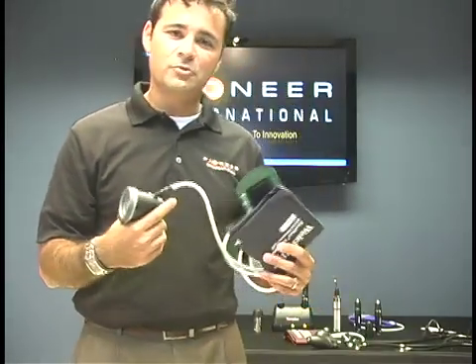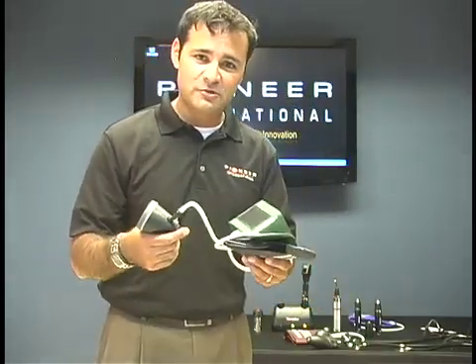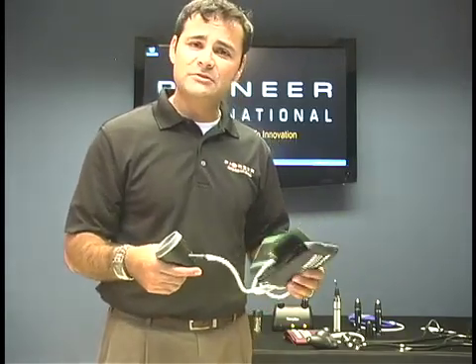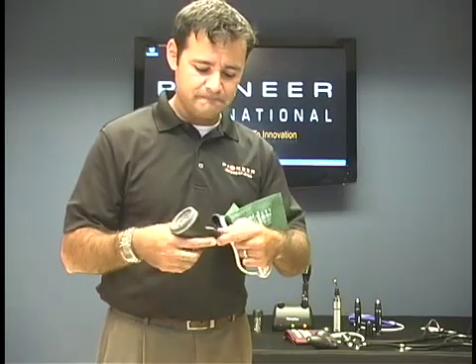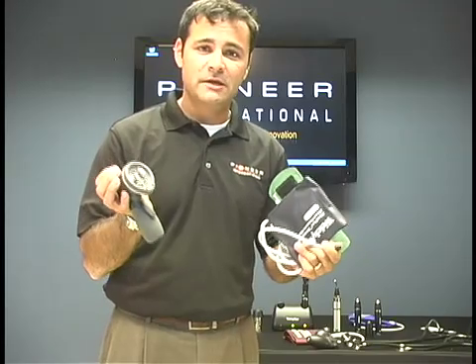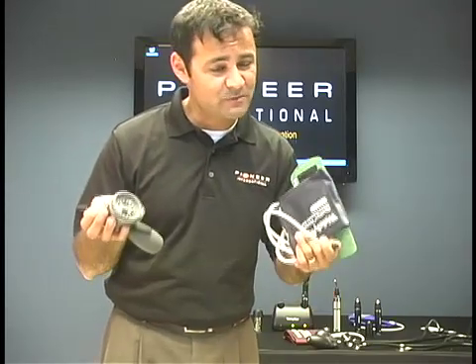It lets us know that we're taking accurate blood pressures. This is probably the most important part to remember — especially when you take your boards and you take your blood pressure, you want to get that right. Again, we can get this with a couple of cuffs or with a family practice kit, and this is easy to maneuver. It is just a gauge, but you should make sure it's calibrated.